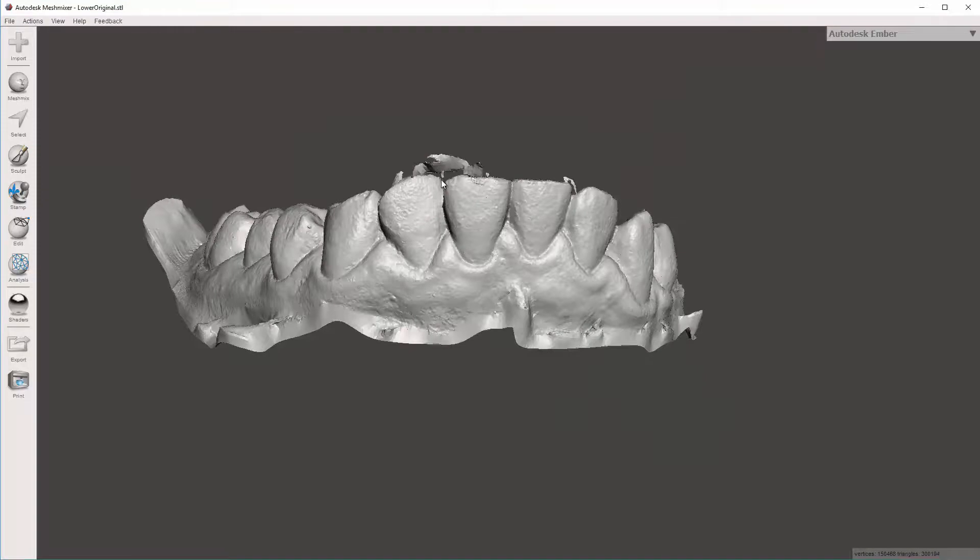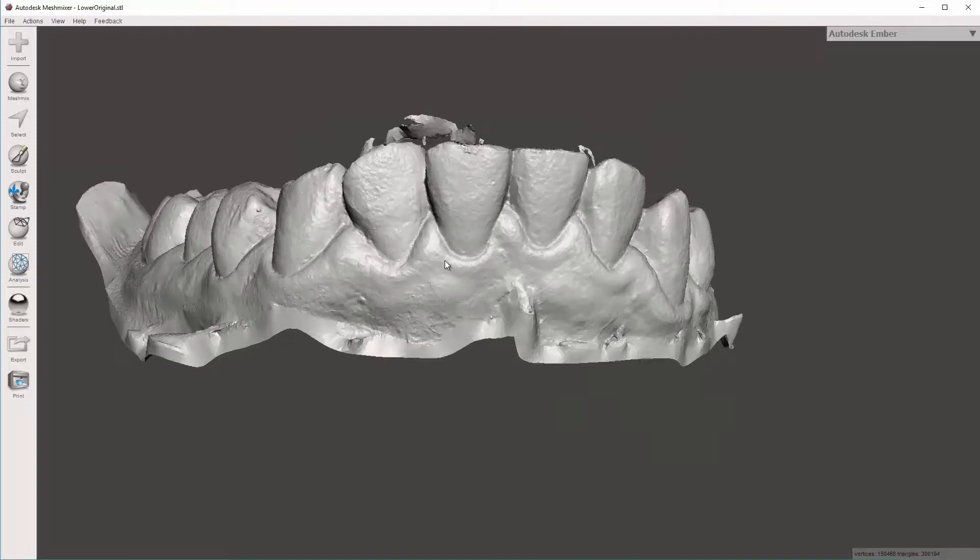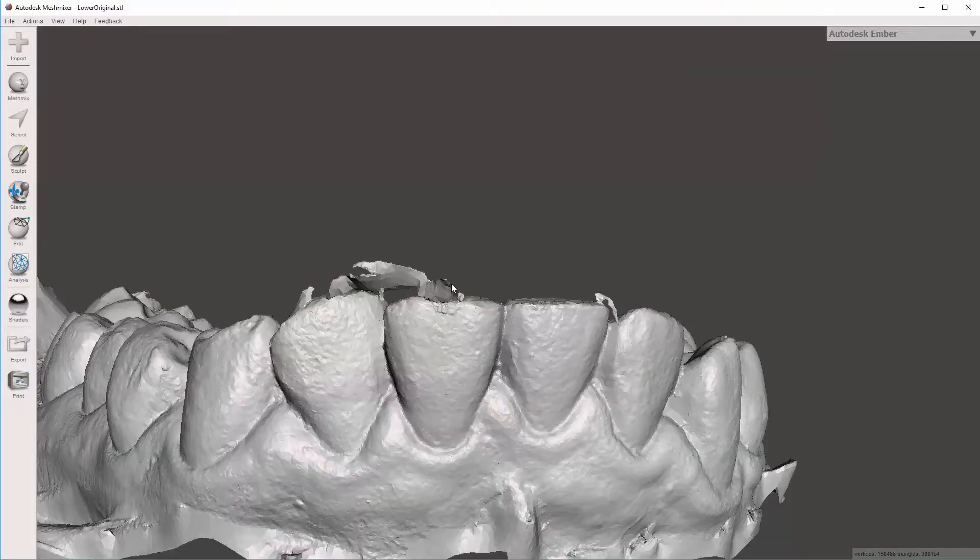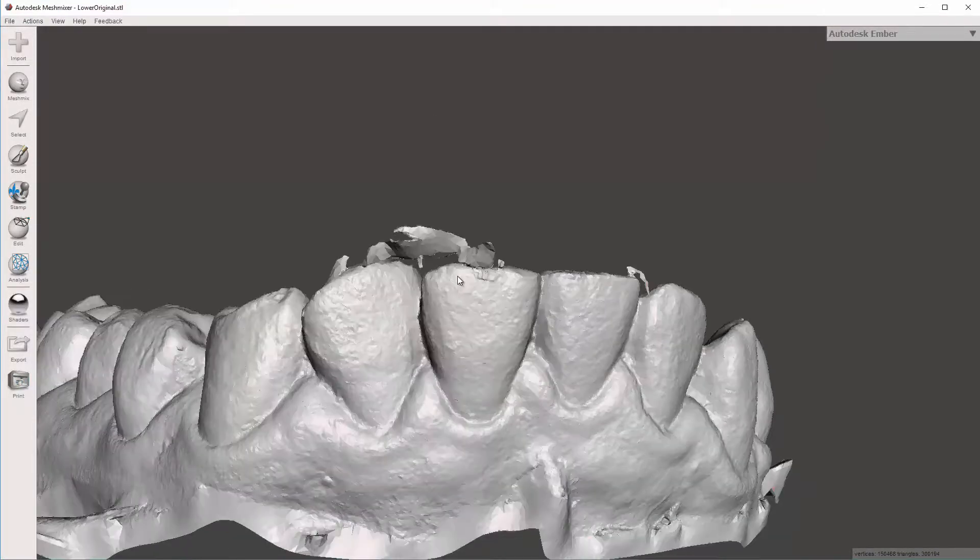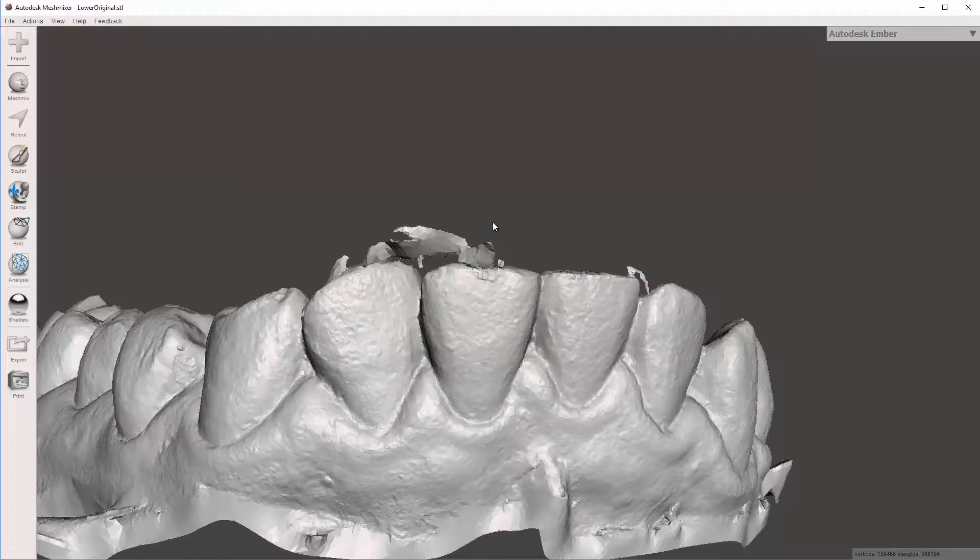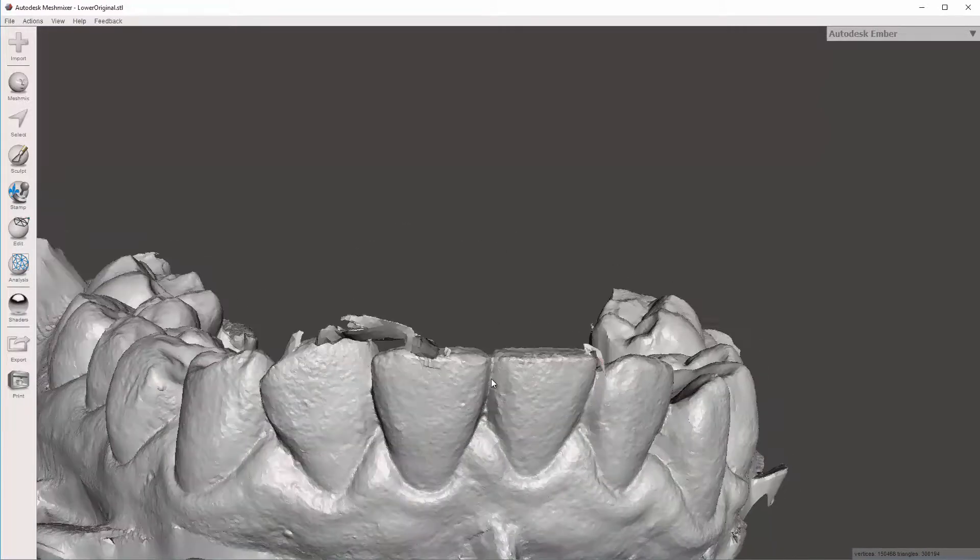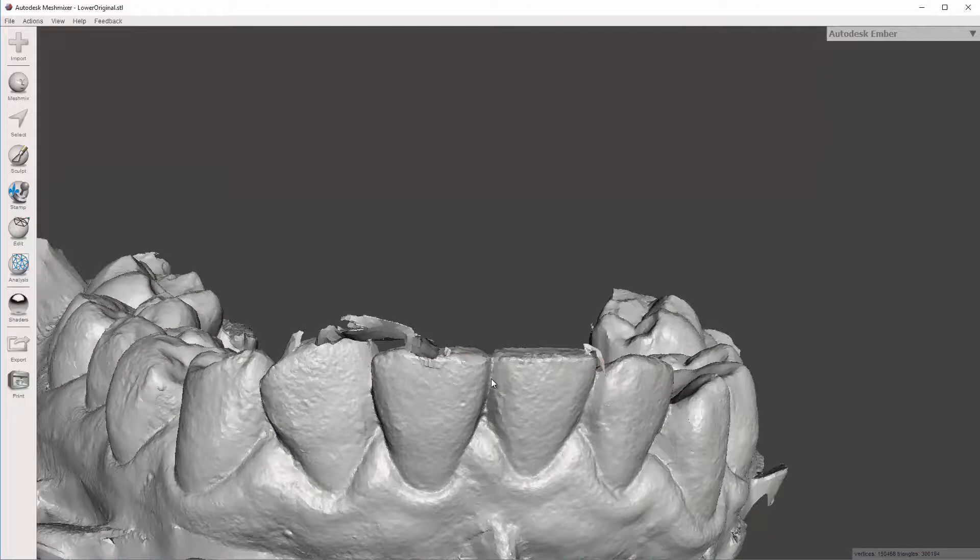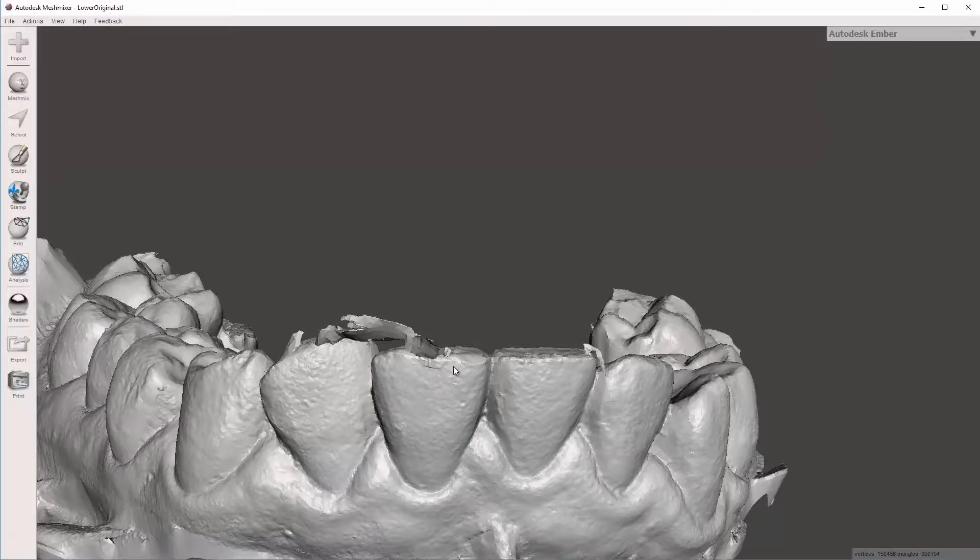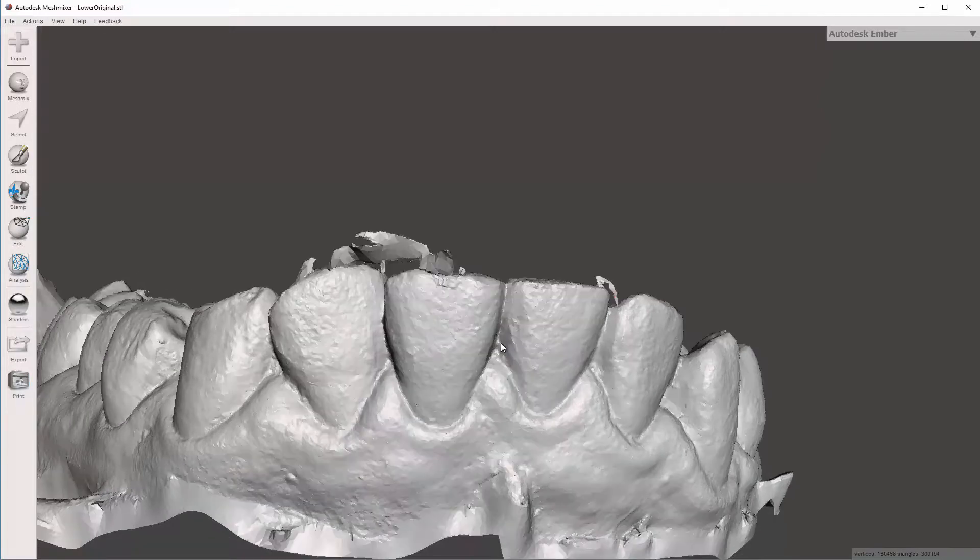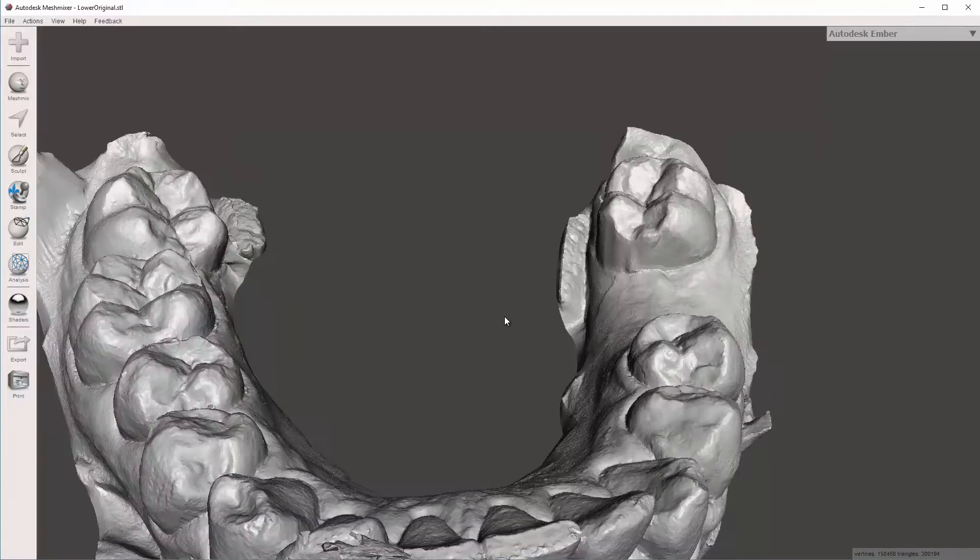So the first thing is, you can see the little blebs. These occur on occasion. I think some scanners are more prone to it, but I've seen in CEREC scans, more often it'll be more of a void in the model, just a hole, not so much a positive error like this. But that's okay. They're pretty easy to fix.